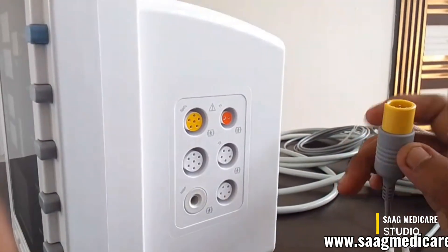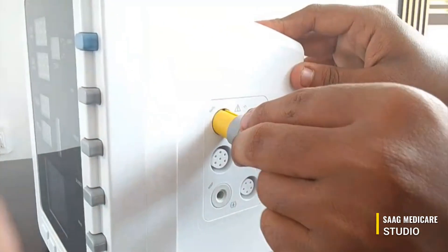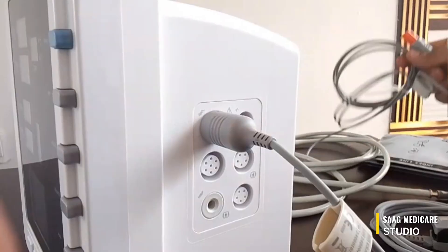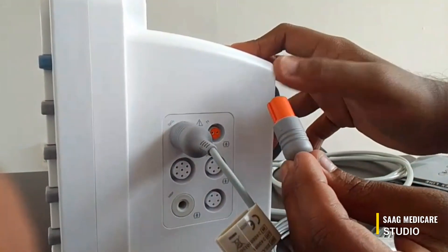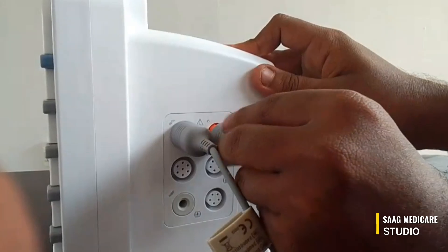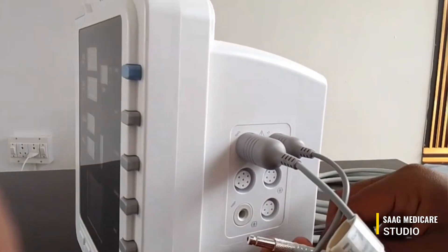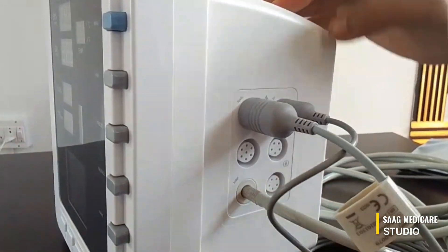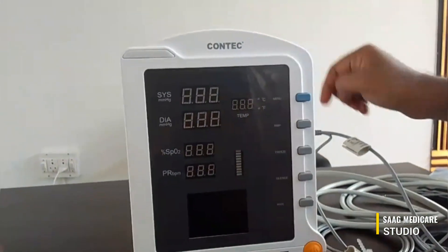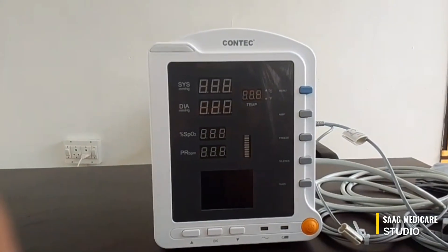Now we can make connections to the device. First we can insert our SpO2 probe like this. Second, we can insert our temperature probe — you can see the color coding so you can easily identify it. At last we can insert our NIBP tube. Check that the connections are properly made.